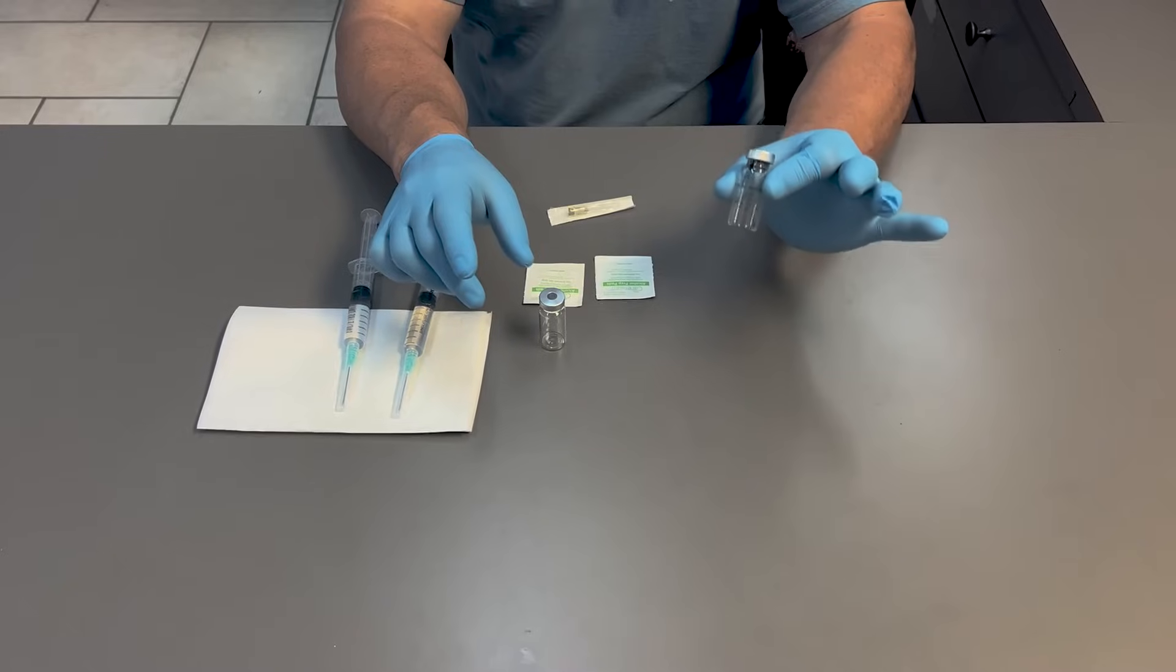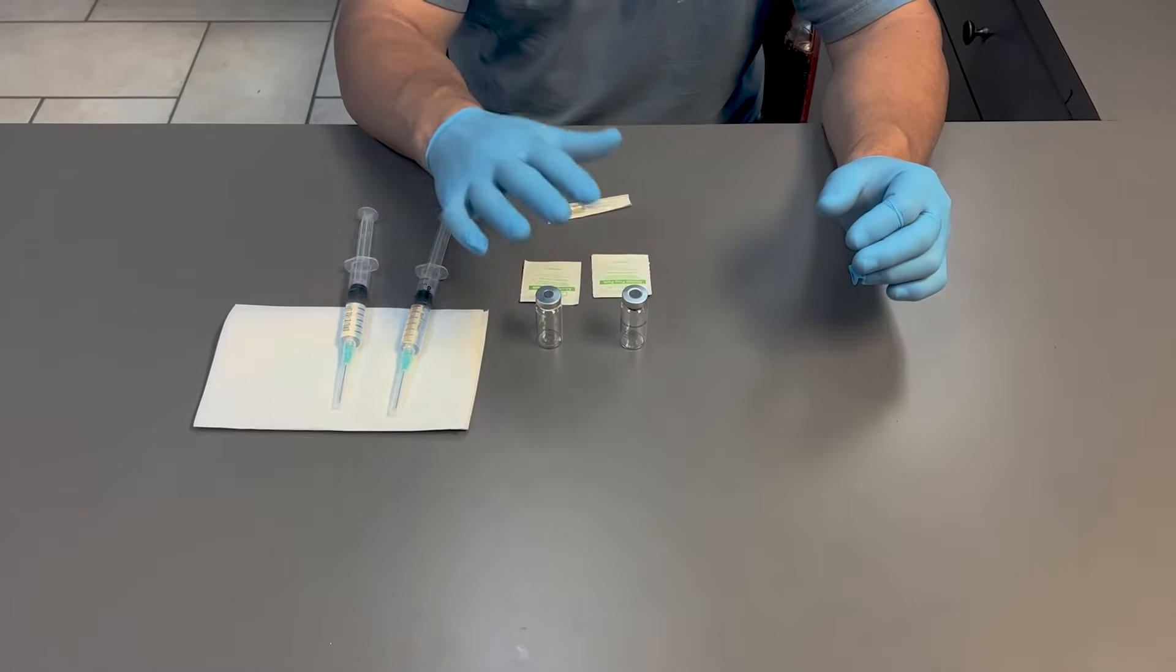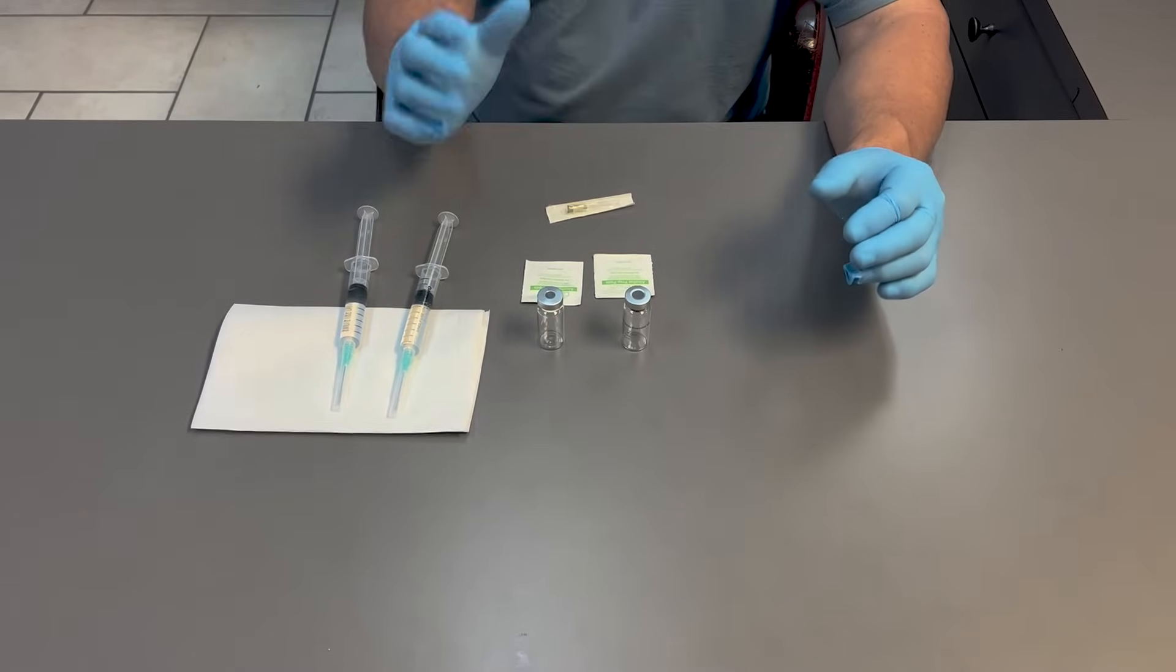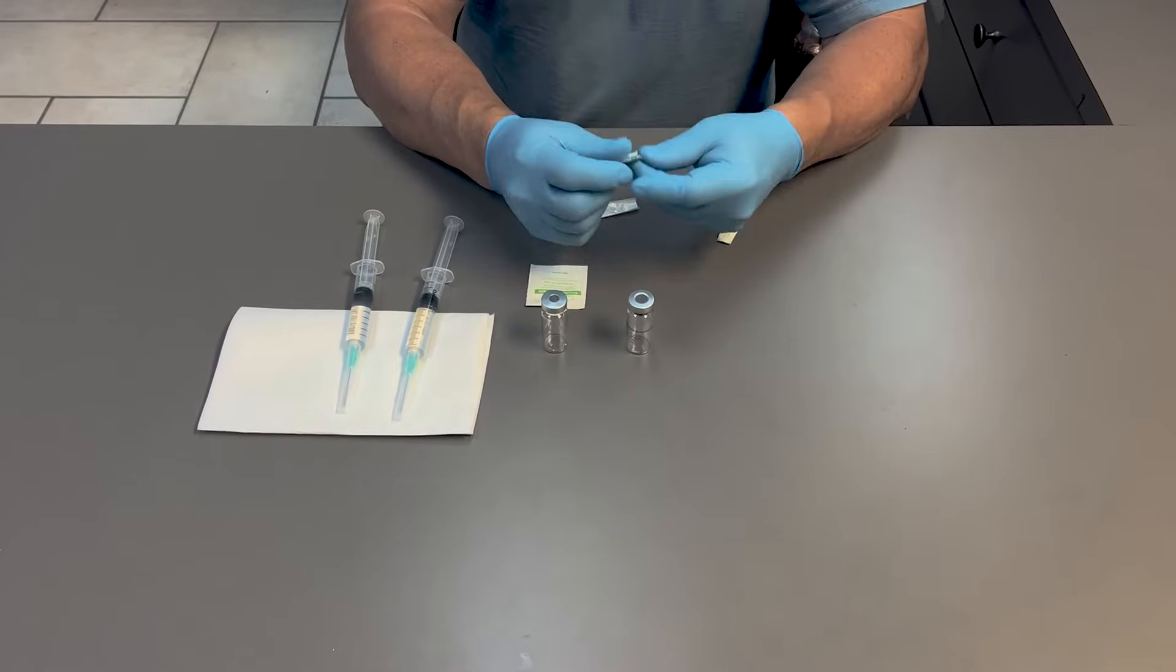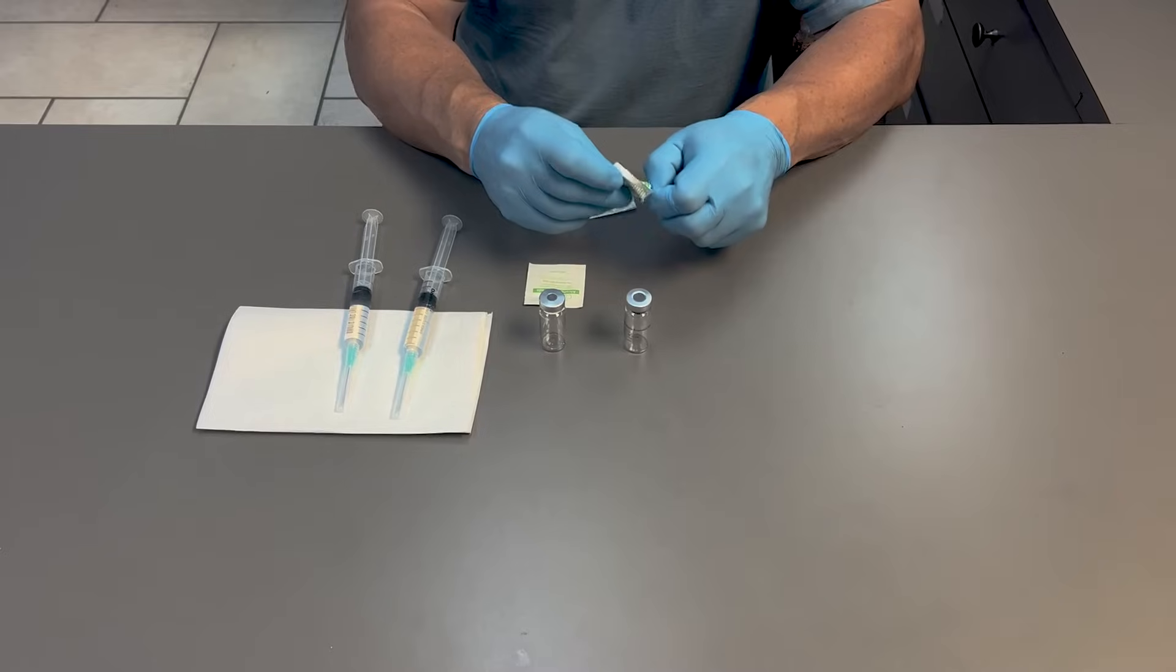One is an evacuated vial, and many times people don't understand the difference between these two vials and the advantage that an evacuated vial can offer. So I just wanted to demonstrate that. We're going to pretend that we're filling these vials with a sterile solution.